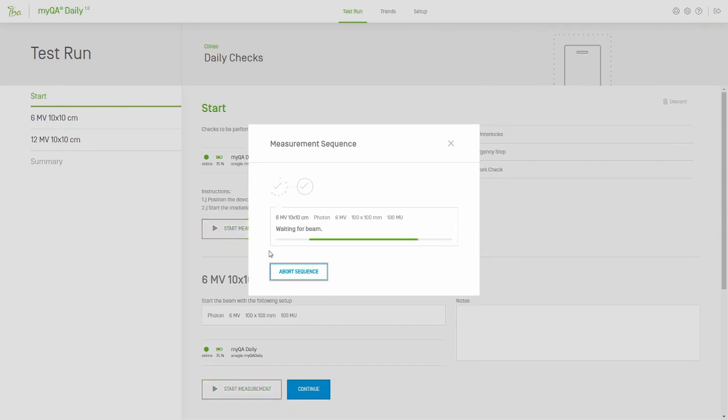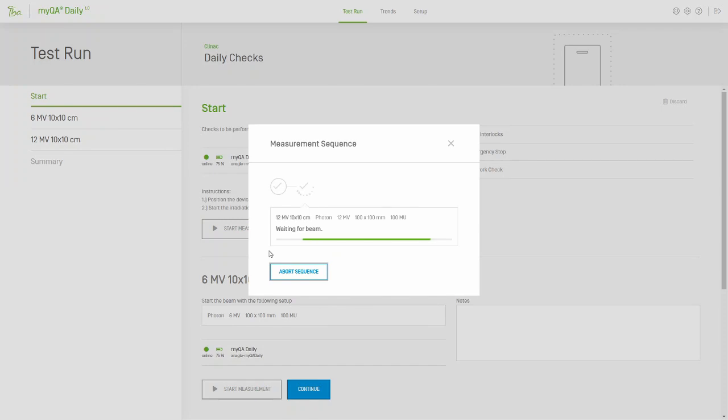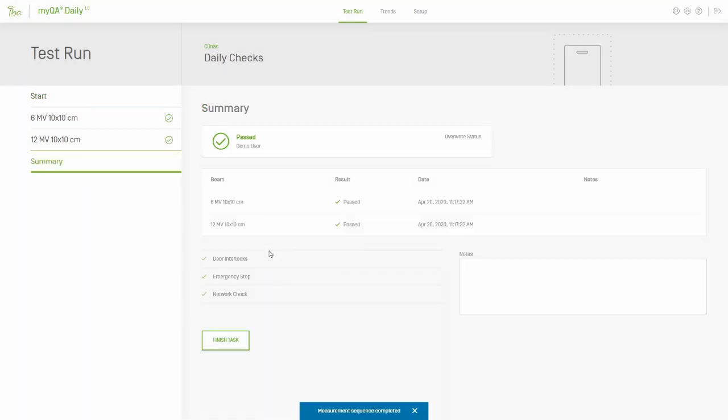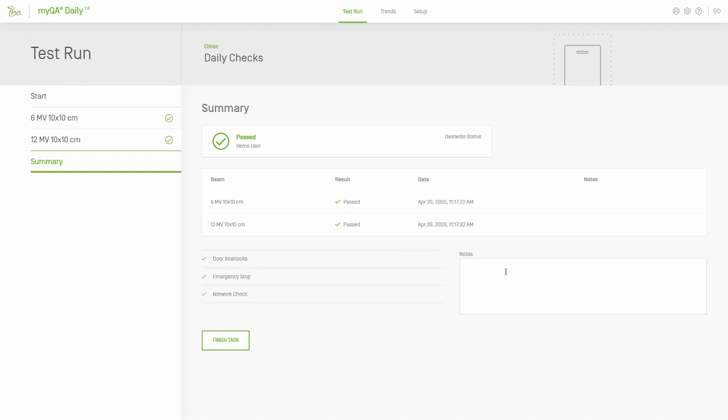Here we can see the task workflow for multiple consecutive beams. The pop-up box will provide the user with field settings for the first field and wait until the beam starts to begin measuring. After the beam is completed, the sequence will move on to the second field, again showing the field settings and waiting for the user to start the beam. This process will repeat until all beams have been irradiated in the sequence. In this case, rather than showing the detailed results for each beam, the software displays the overall results.